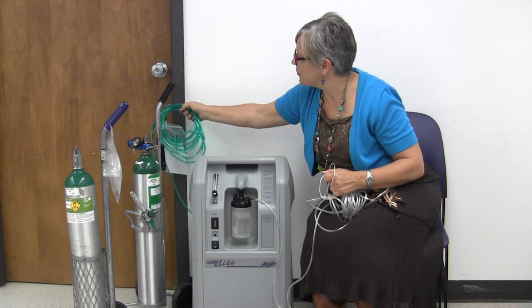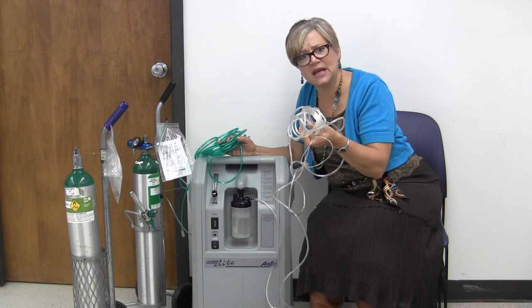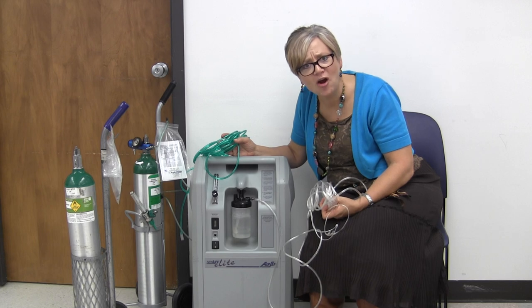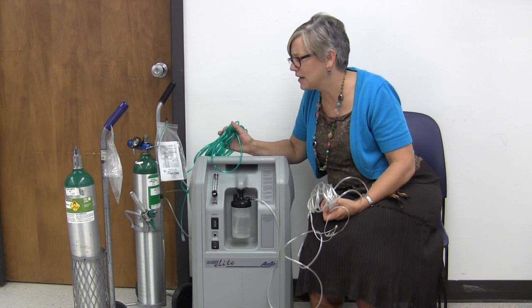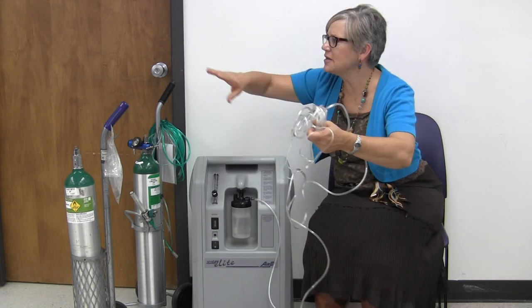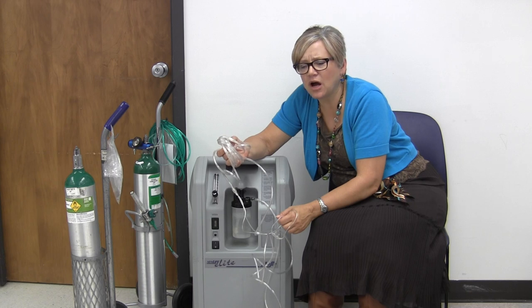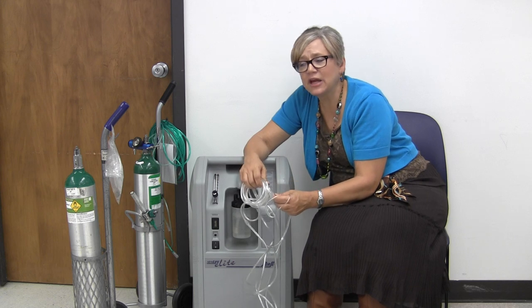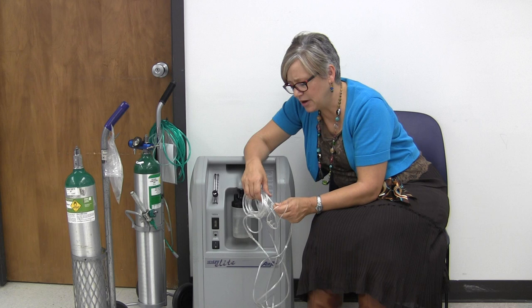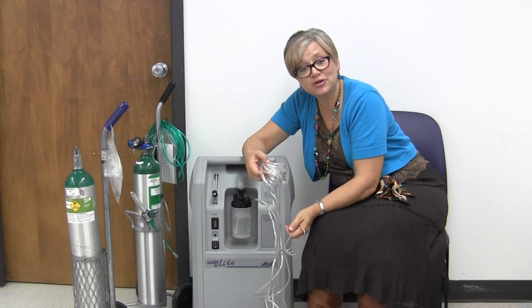Another thing — they make these bright green hoses. I kind of like them. Look how bright that is. But how many people trip on these? They're hard to see. I even heard of a company now making glow-in-the-dark ones — how cool is that, although it might keep me up at night. I was at a lady's house a few years ago — she had her oxygen tubing going from one end of her house all the way back through in a huge wad. That creates lots of risks for trips, kinks, and getting it shut in doors. It might be something you have to work out with your clients — maybe getting a smaller, shorter O2 hose.